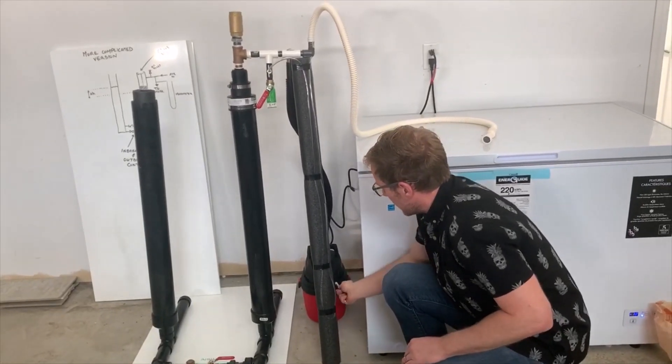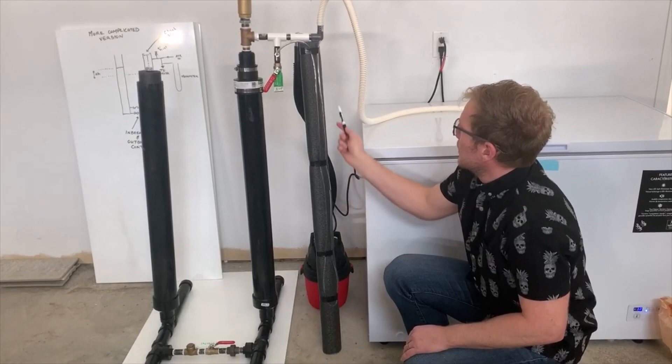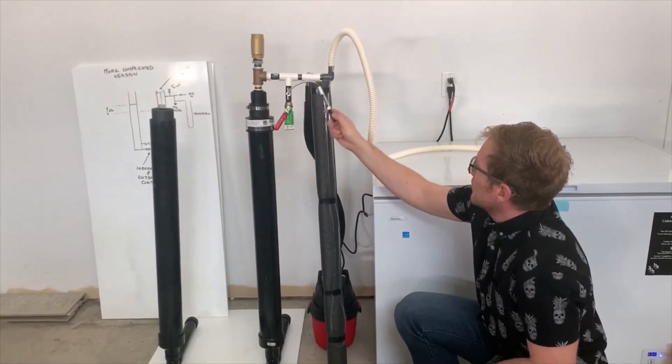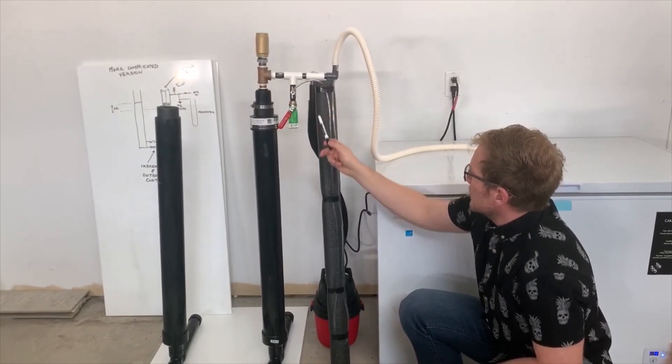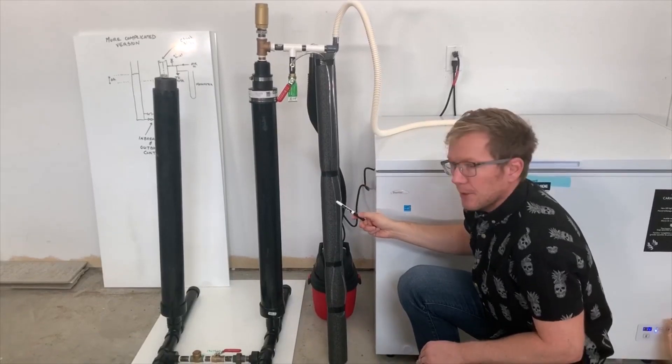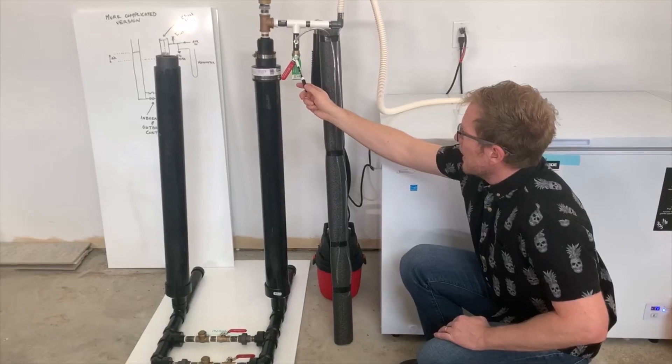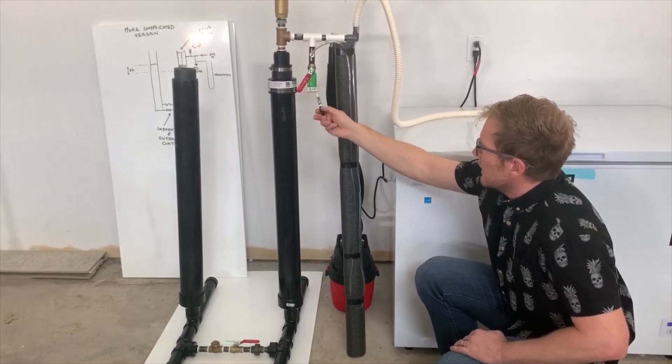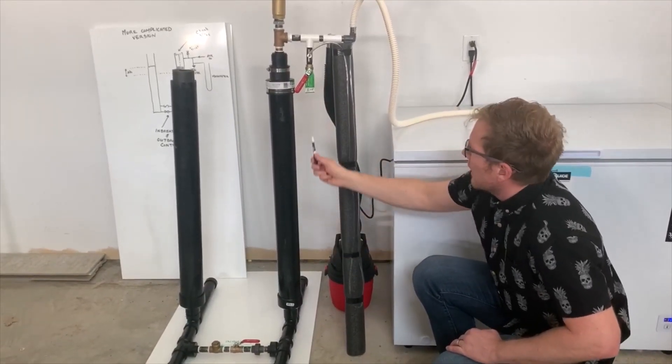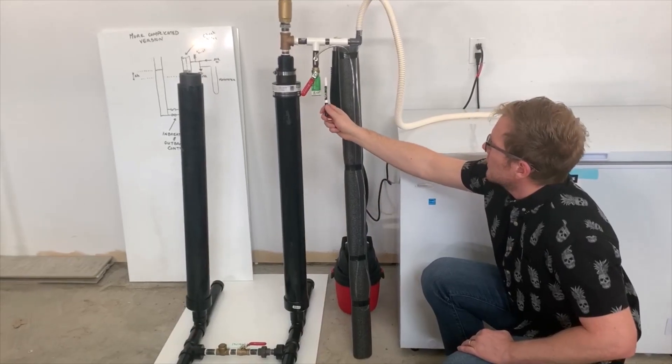Here's the source of air to the system back here—it's a shop vac. Air comes in here. This is a manometer tied into the same line, and we can read the pressure in the line based on the water level in the manometer tube. This is the vent which allows us to bleed off enough air so the shop vac can be a suitable pressure source for this system.